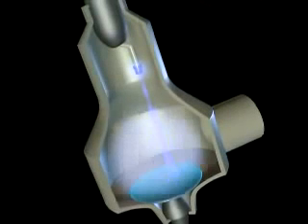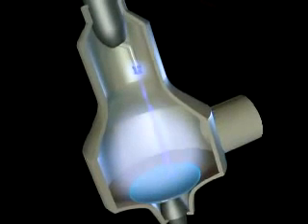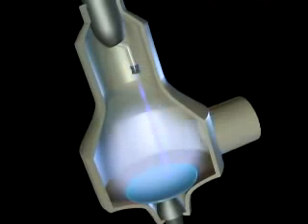When the electrons released from the cathode come in contact with the tungsten, they release energy in the form of photons.